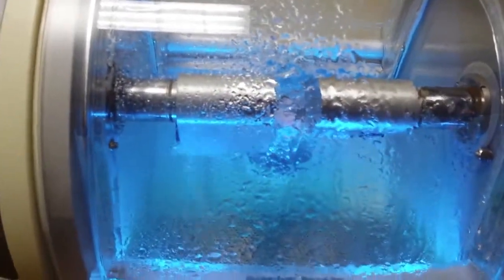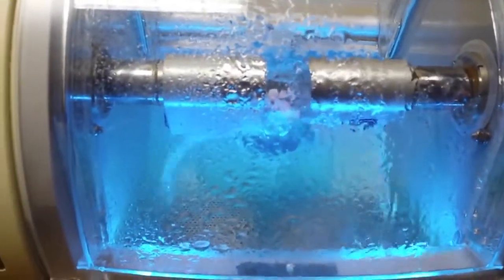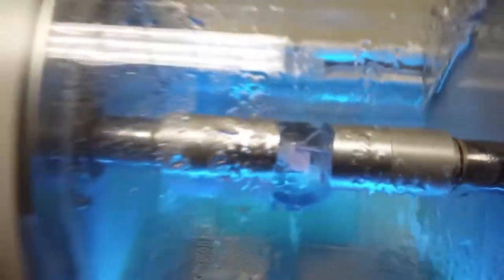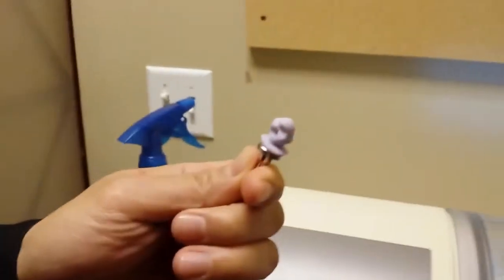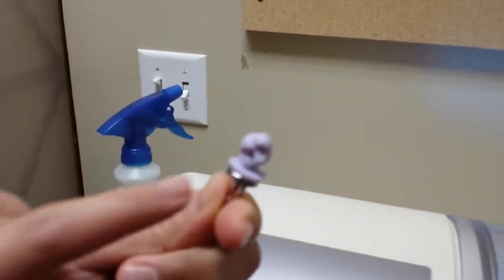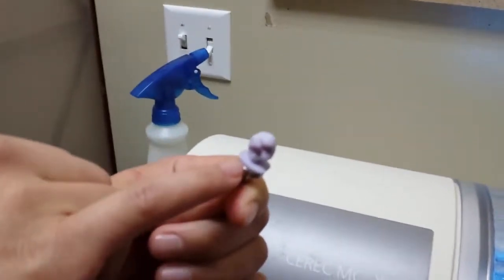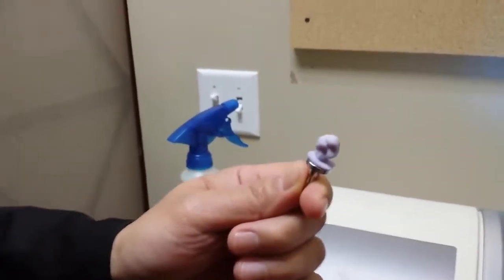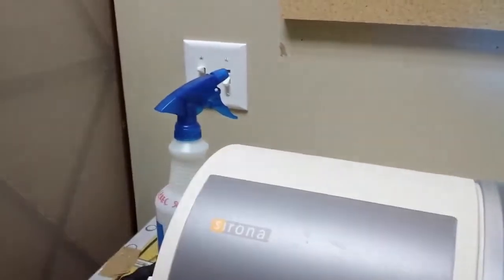This is my tooth being made. You can see how it mills it out. And that portion is called the sprue. It's real thin. And then it cuts it real thin and it flakes off and it just falls in there so that you can get it. There you go.